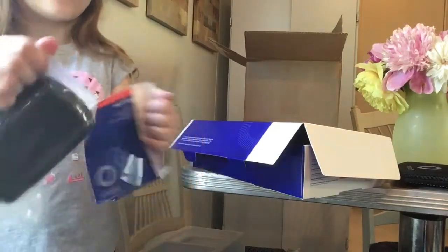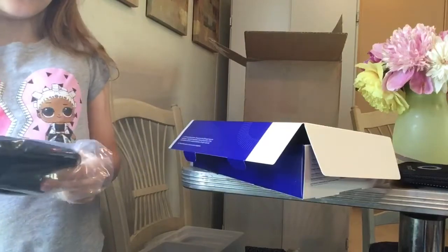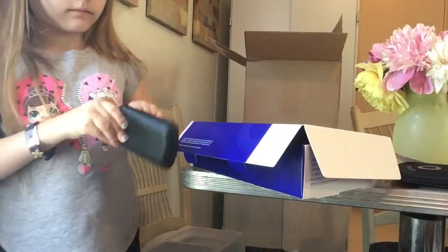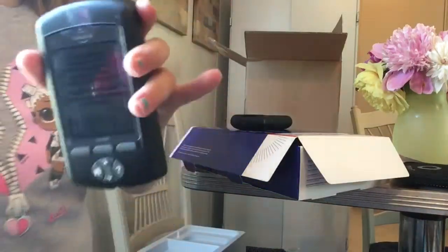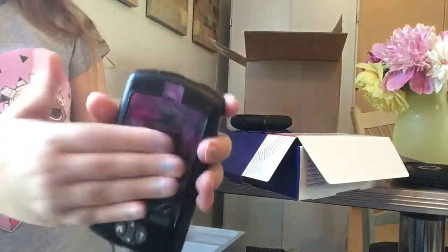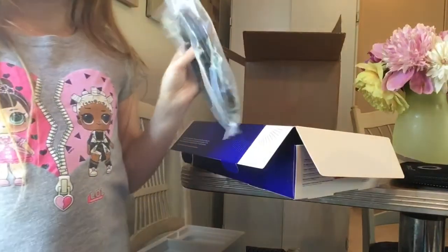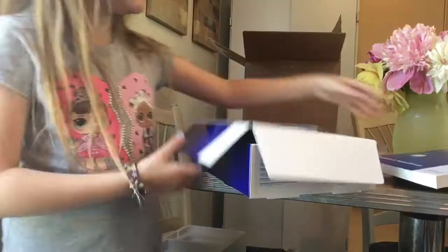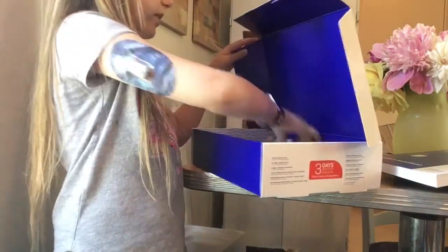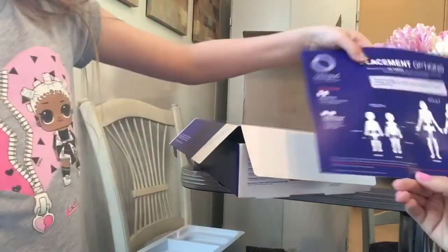If they do have cases I hope they have purple — I don't know if there's just this black one. So there's this paper inside of it, and here it is — super cool. I think this is the charger — yes, charger. And the books: the quick starter guide and the user guide. And then it looks like that's all, other than this paper in the bottom. And behind it there's a diagram showing placement options.